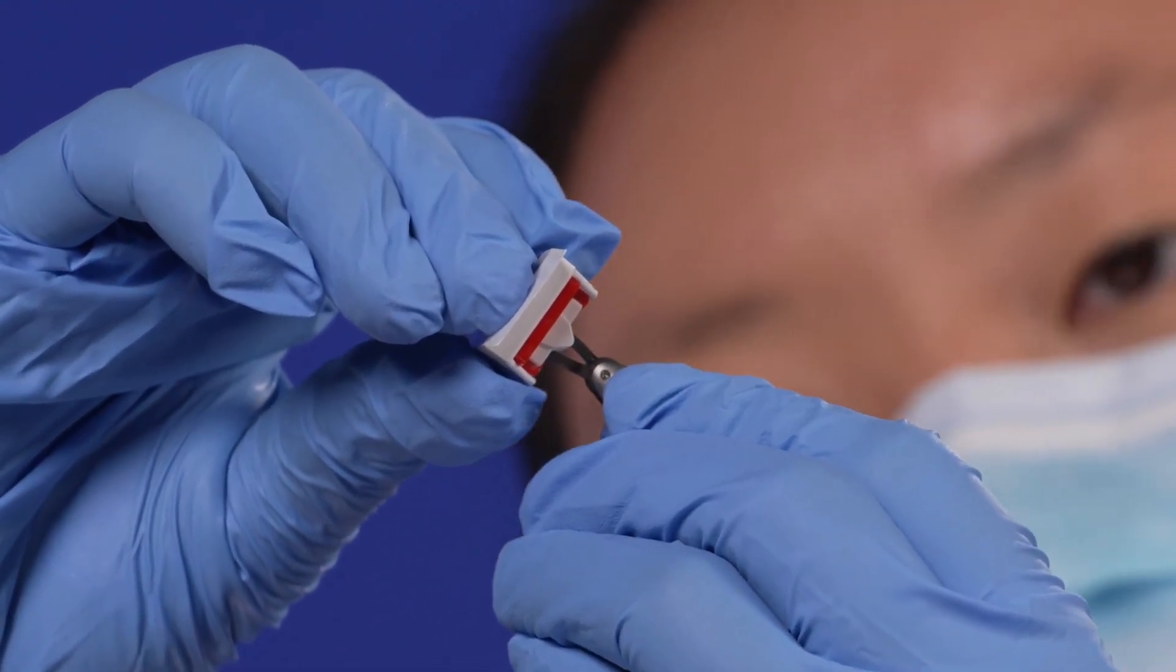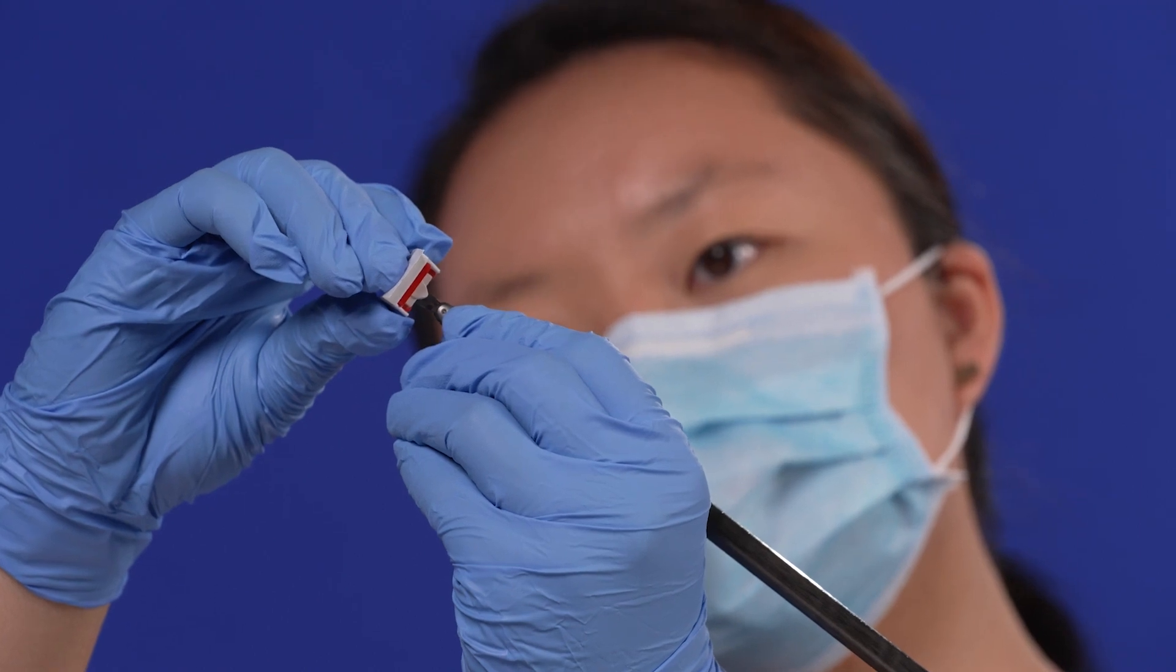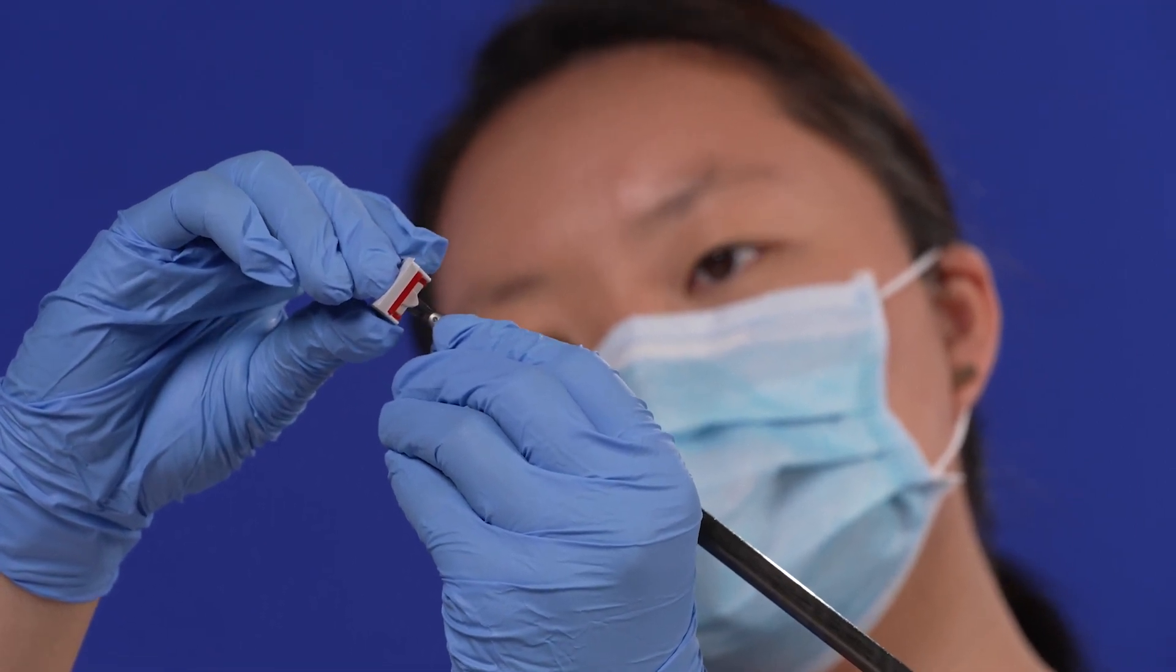Do not press too hard with the instrument or the clip cartridge while loading the clip, as excessive pressure will damage the instrument tips.